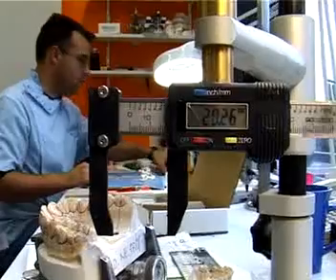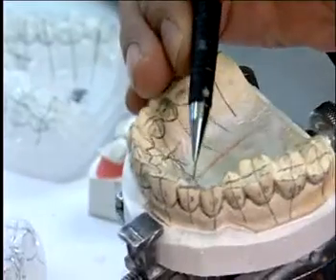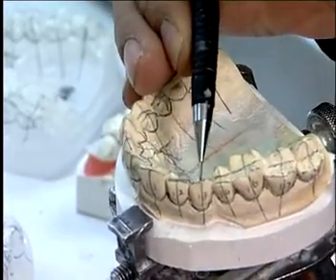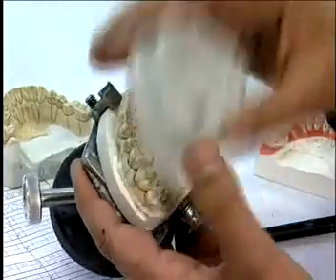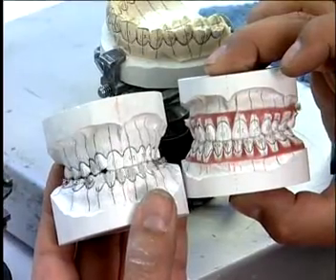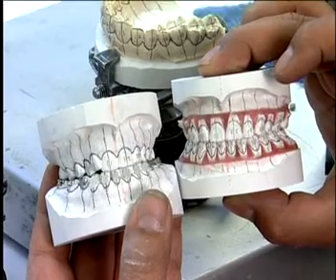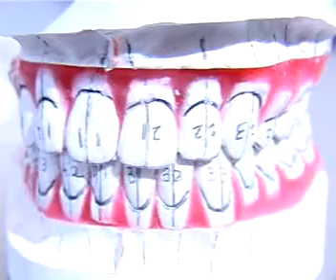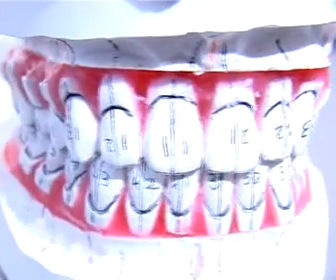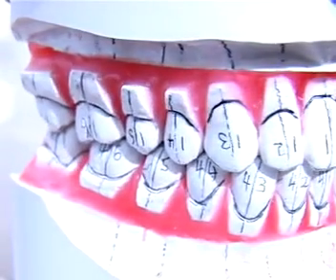Using a patented manufacturing process, the laboratory follows a series of stages that go from a patient's current condition to the desired end result. A final model is created with all the necessary over-corrections.